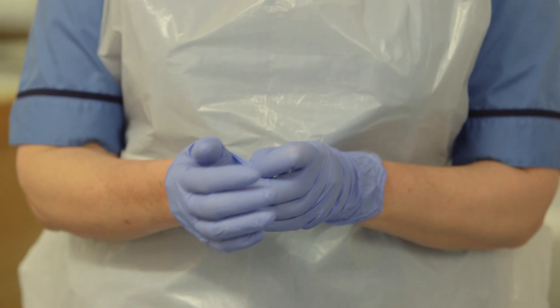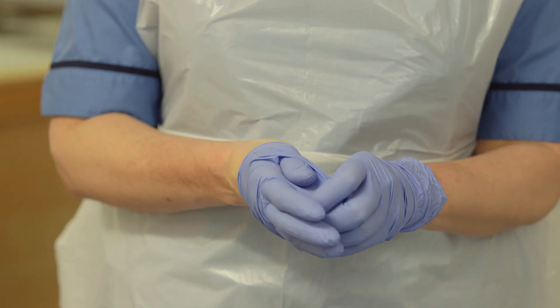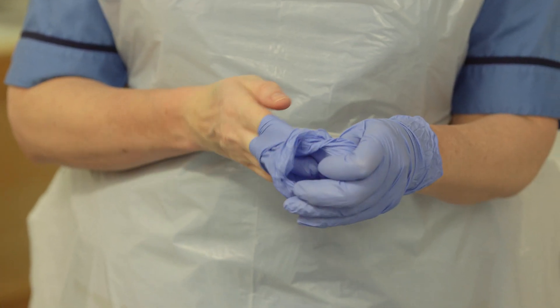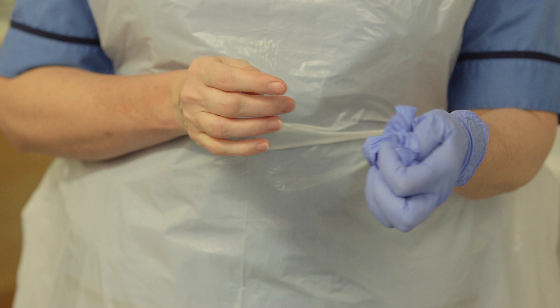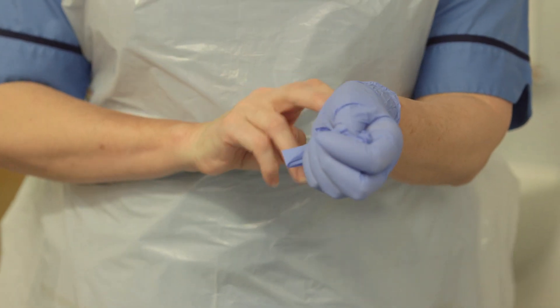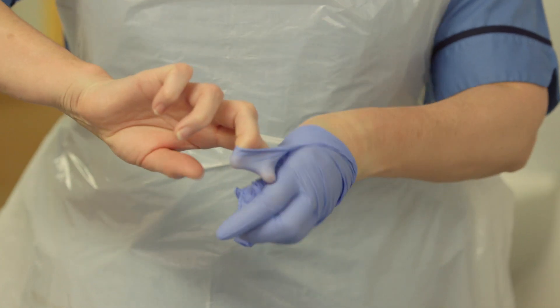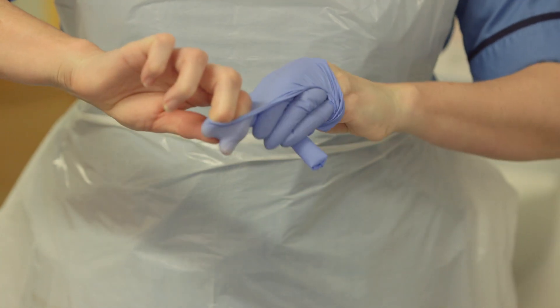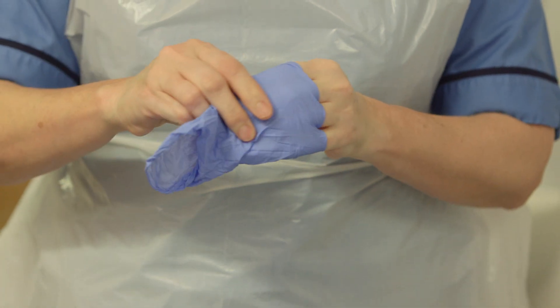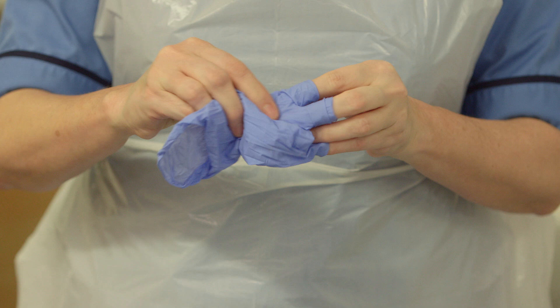Pull the first glove down all the way from the wrist with the other hand. Be careful not to touch your skin with the glove. Turn the glove inside out whilst removing it. Hold the removed glove in the gloved hand. Now remove the second glove by placing the index finger of the non-gloved hand inside the glove at the wrist. Peel it off, again turning the glove inside out and enveloping the first glove at the same time.